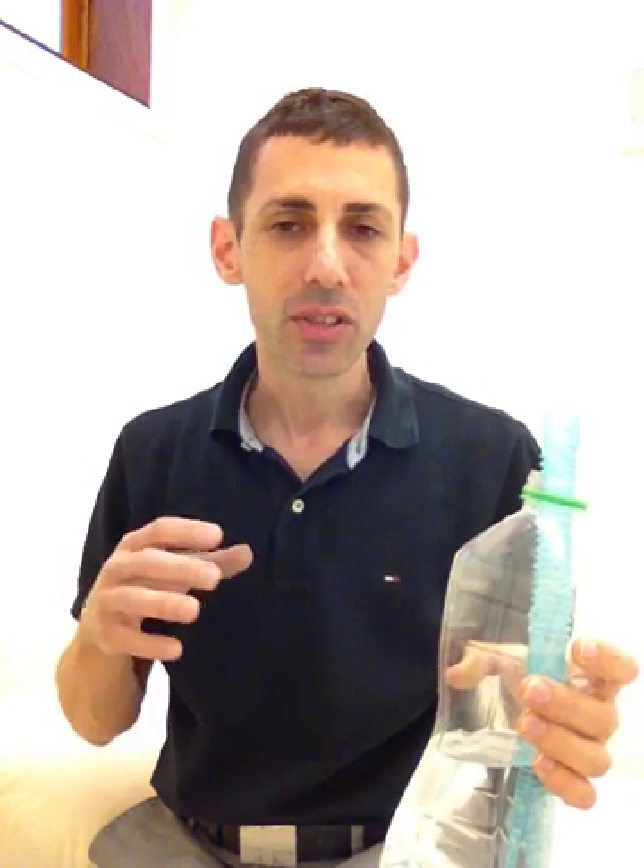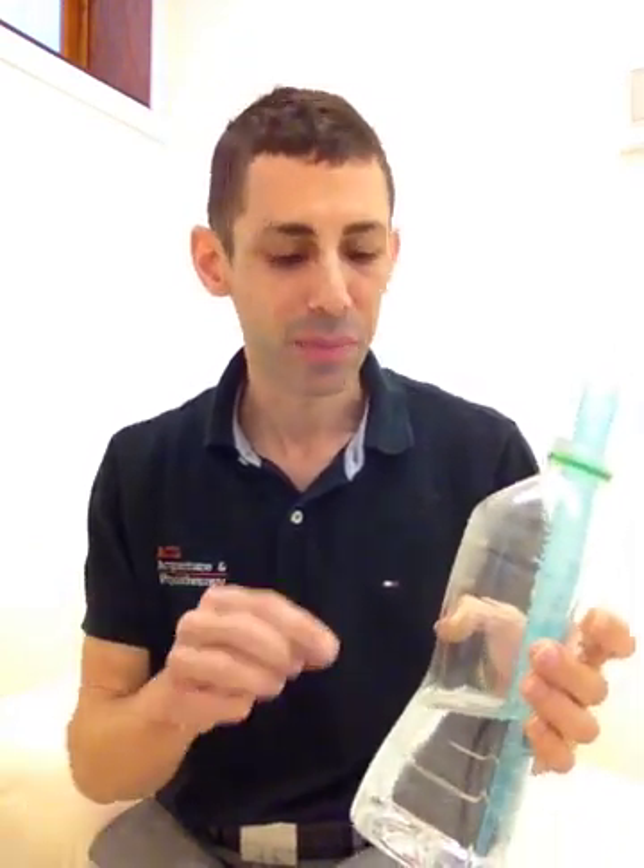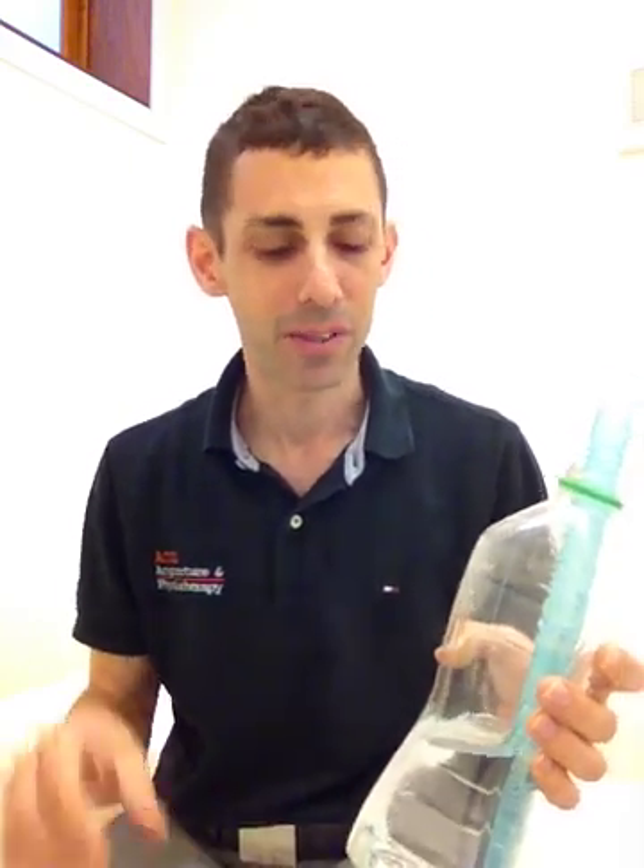It has a similar effect. So look, this is a great way to start at least to see if it's going to be effective for you or your clients — bubble PEP. In fact, some therapists will put a little bit of bubbling formula like a bubble bath type stuff in here, so the bubbles come up and out and the kids have a wild time. And also get that benefit of course.